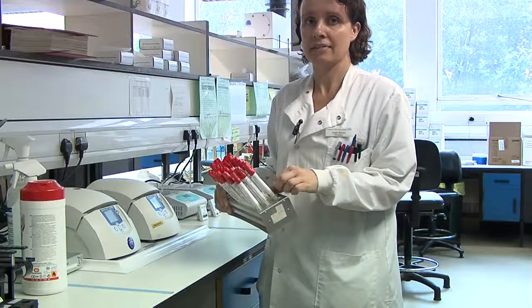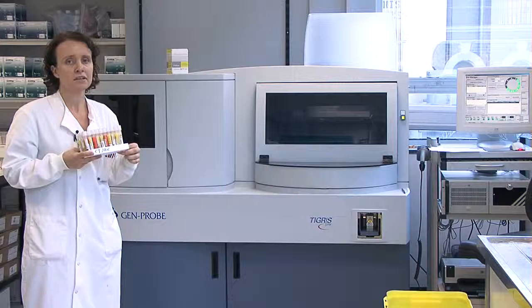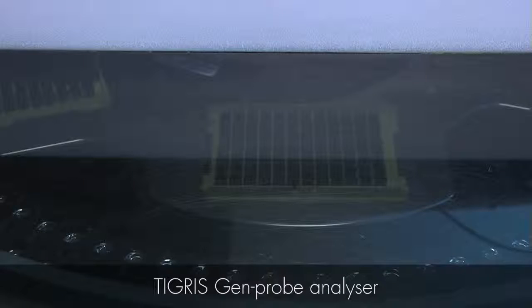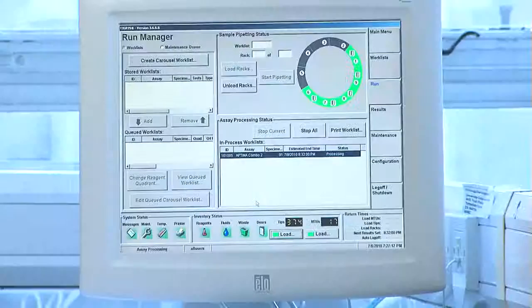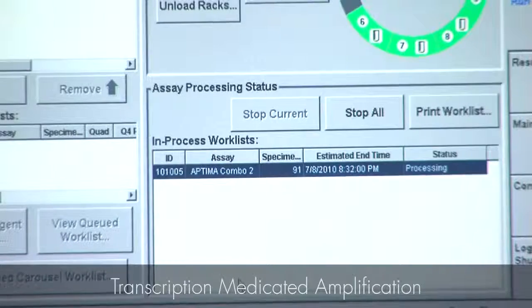This laboratory does the testing for the sexually transmitted infections chlamydia and gonorrhea. Chlamydia is the most common sexually transmitted infection. This is the Tigris GenProbe analyzer, which carries out the molecular detection of the nucleic acids of chlamydia and gonorrhea using a process called transcription-mediated amplification.